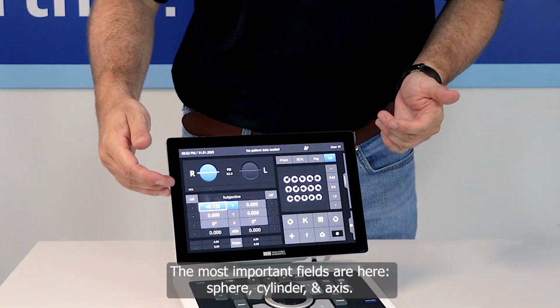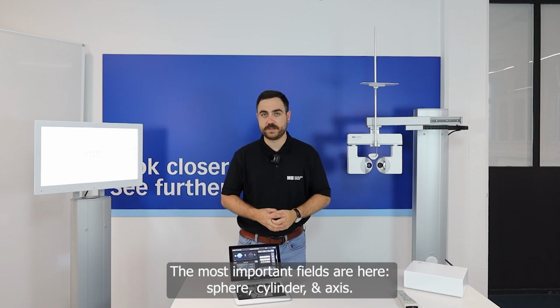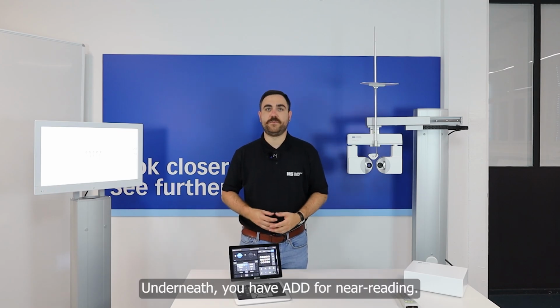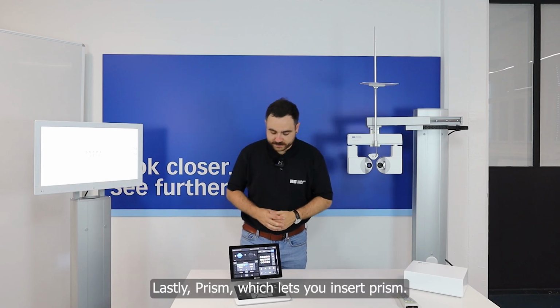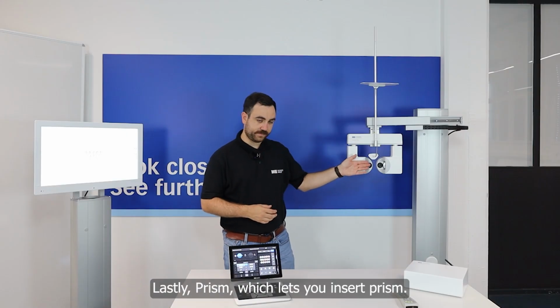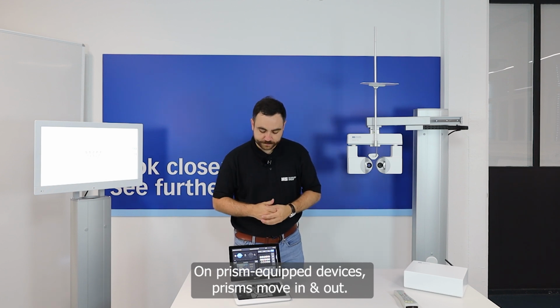Then we have the most important fields where you can see which sphere values you will insert, the cylinder and also the axis. Under it, it's ADD for near reading. You can press on it to activate it. And last but not least, the prism mode, which gives you the possibility to insert the prism, because in our case, they move in and out.